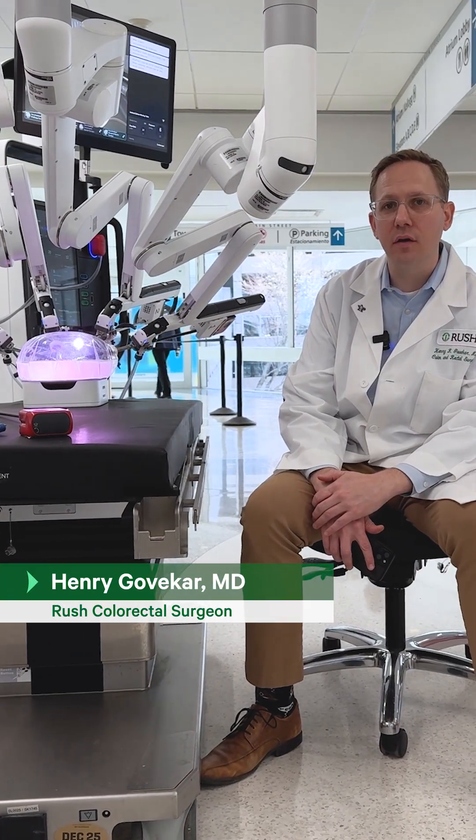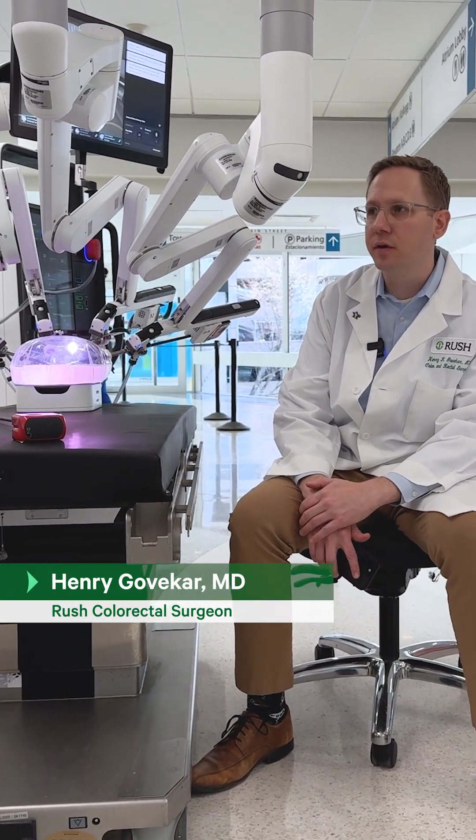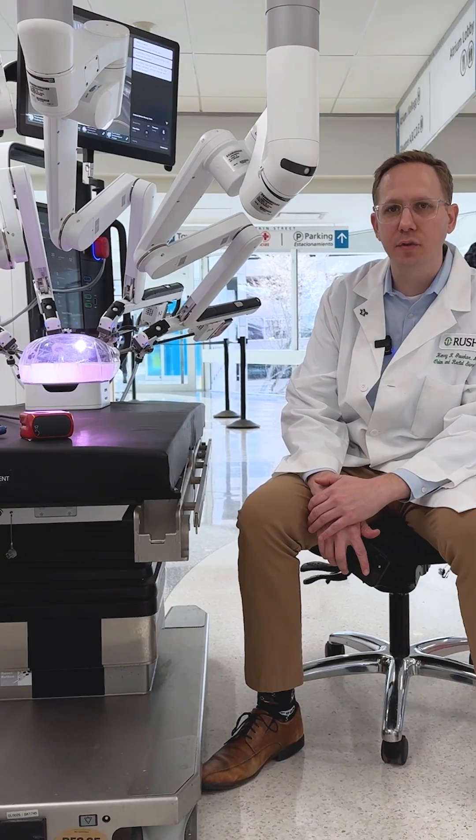This is actually the latest model of our DaVinci robot that we use in the operating room for robotic colorectal procedures.